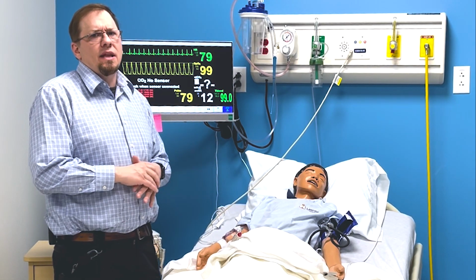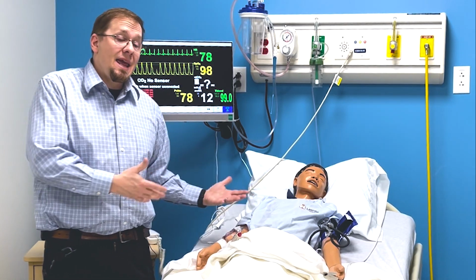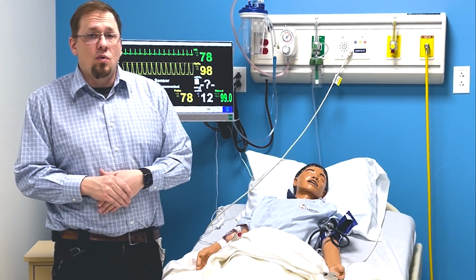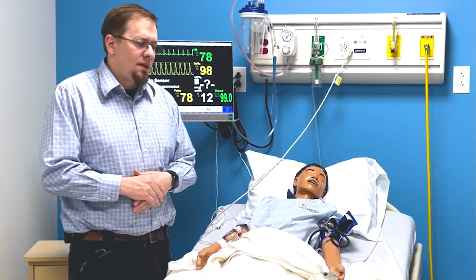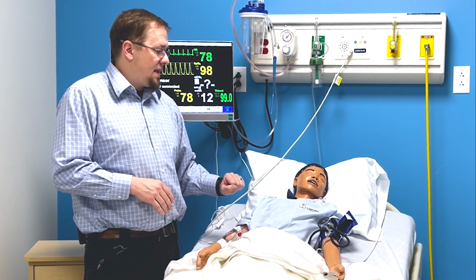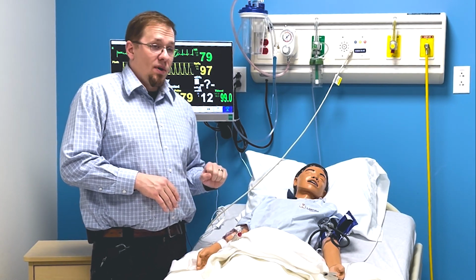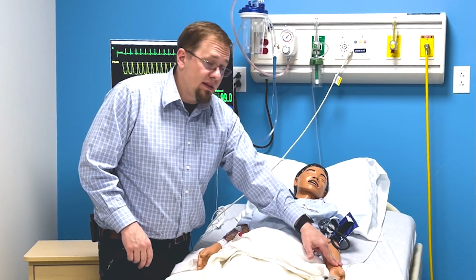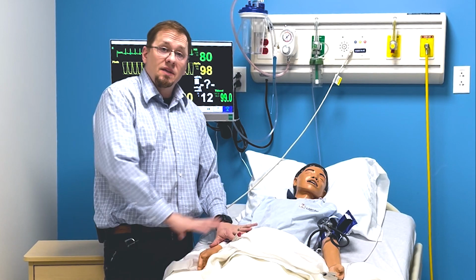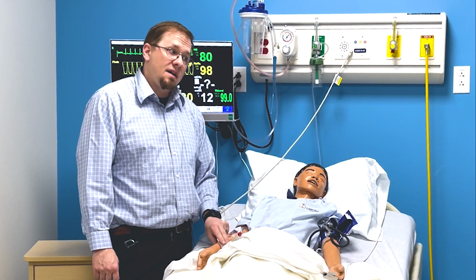But say another simulation we have in here where they do, you're going to actually set the mannequin up because obviously they can't set up themselves. That's usually why we bring you in here in groups of 2, 3, 4, something like that, is so you have that help. But lung sounds are all over the chest, the front of the chest on this mannequin. Make good connection with the stethoscopes. Pulse points. So on this one, we only have it on the left side. The right side is just an IV arm, so it's got all the fluids, no electronics in this arm over here. So you can feel around for a pulse, but there isn't going to be one.